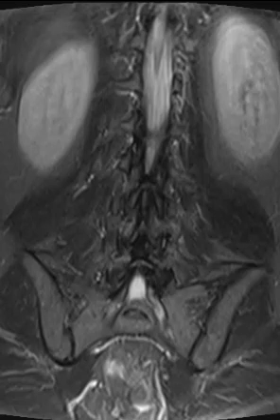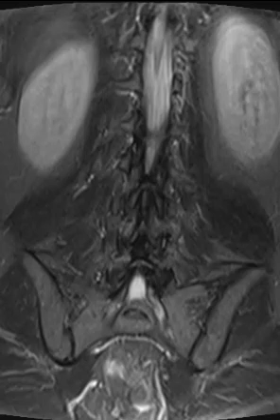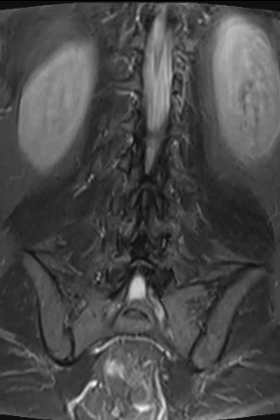Hello, this is Dr. Gay from First Look MRI, and I'd like to show you how to read an MRI of the lumbar spine.